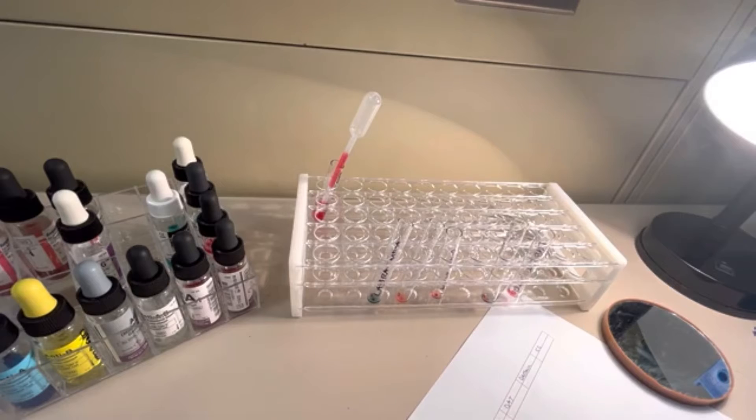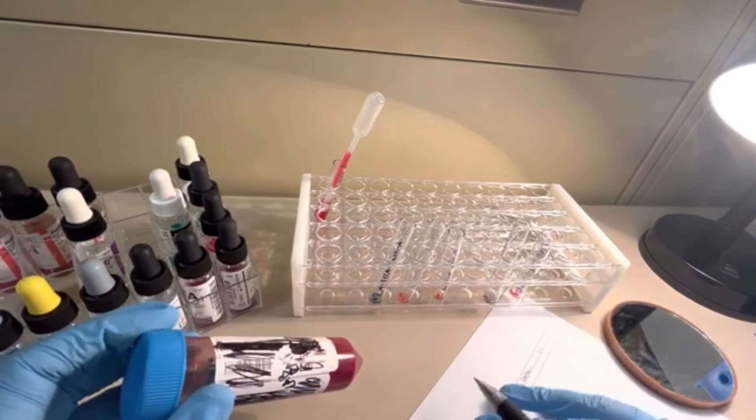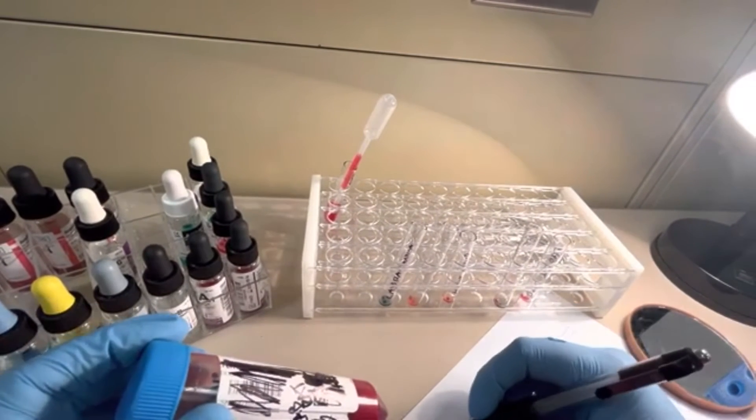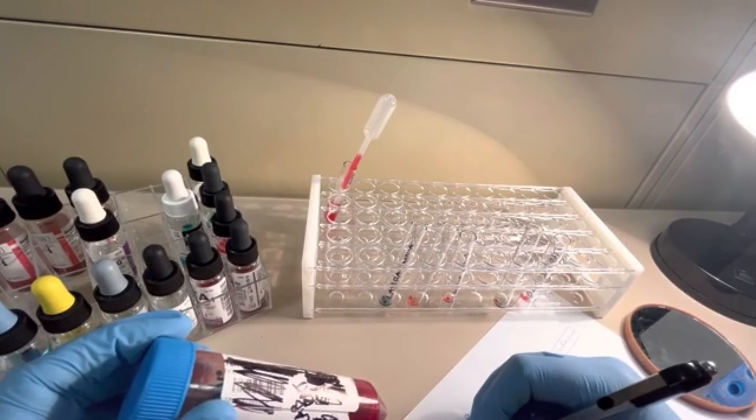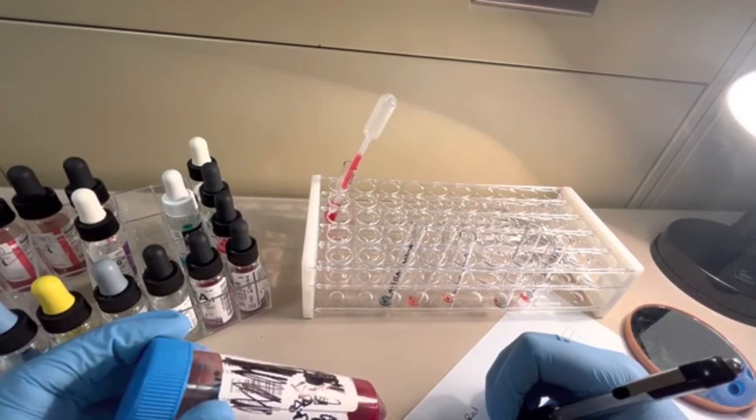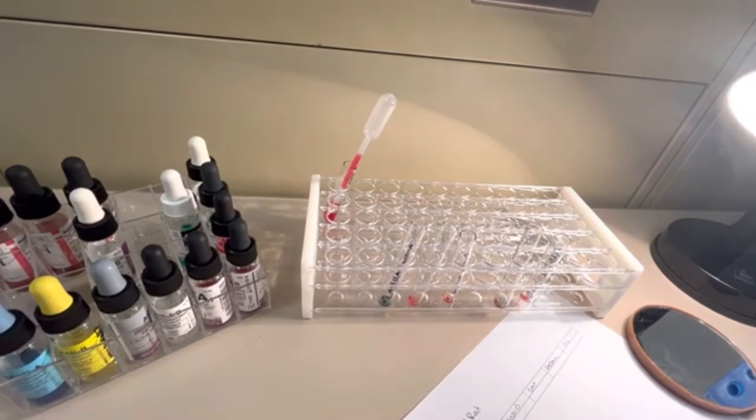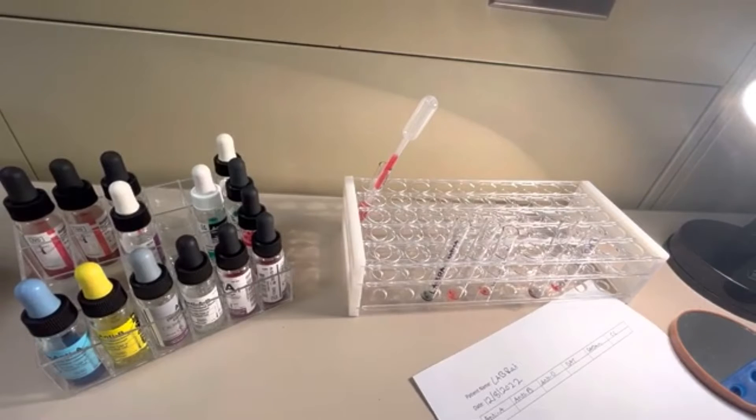Actually, what I need to do first is take my patient tube and document my patient name. It's LabRat. And the date is December 8th of 2022. Hopefully you can see that. Put my sample away.